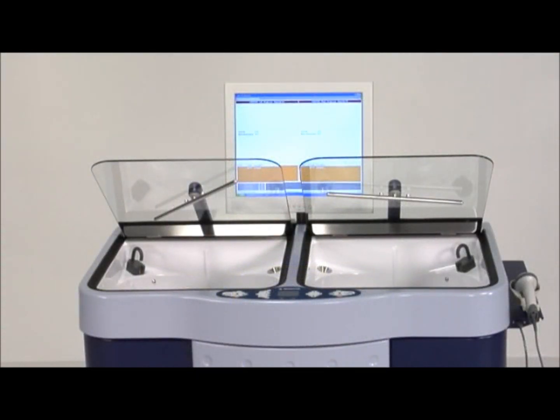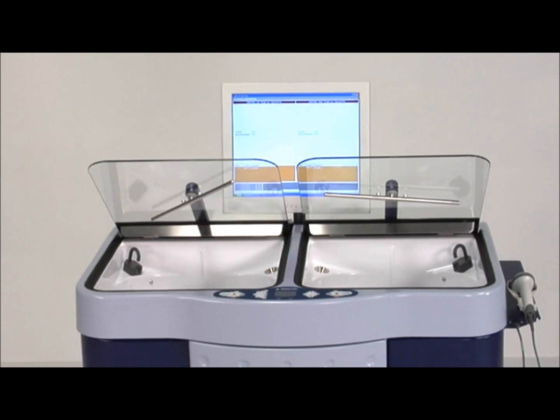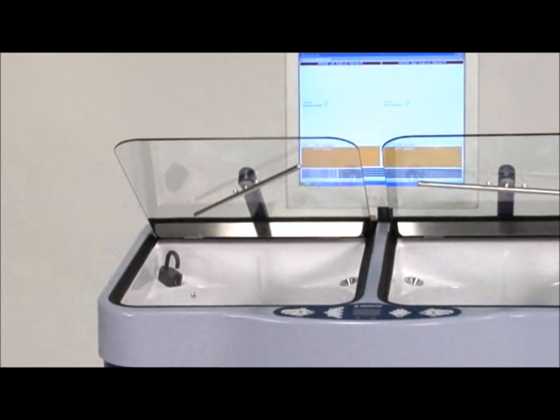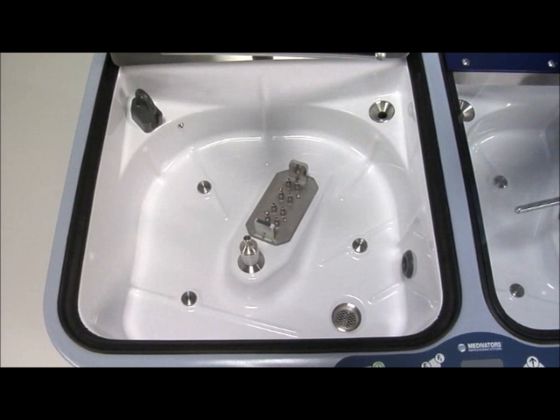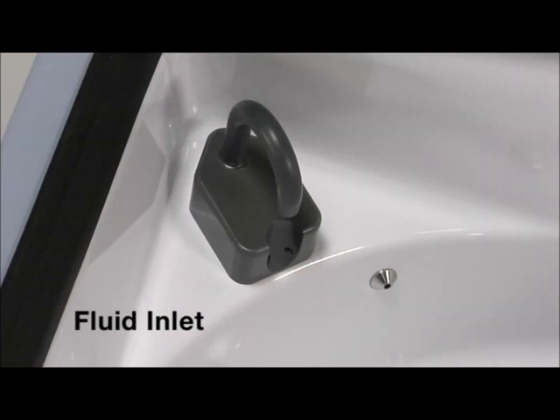The Advantage Plus functions as two disinfectors in one. Each basin operates independently. The following components are inside each basin. The fluid inlet dispenses water and Rapicide PA Part A and Part B.